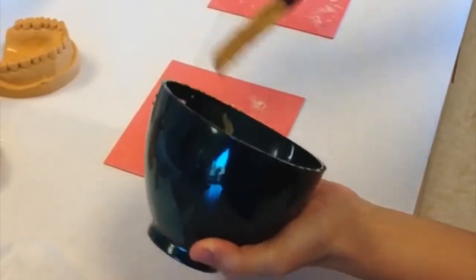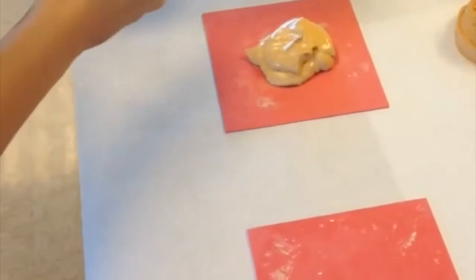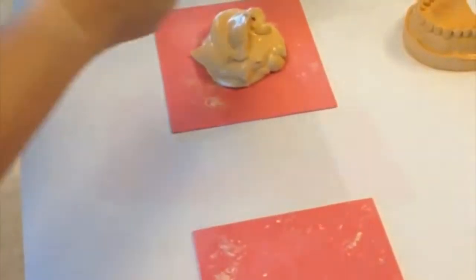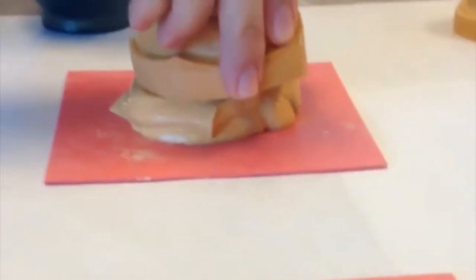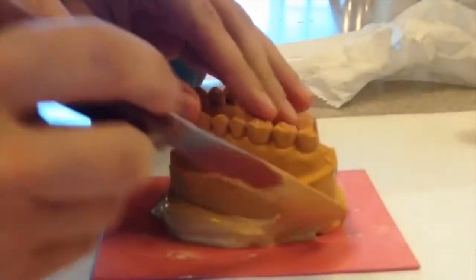You'll make a small patty on the plastic plate and set your cast down on top. Make sure your cast is wet — this helps it adhere to the new base. Use your spatula to flatten out the sides to create a cohesive base with your first cast. Let this dry for 45 minutes.